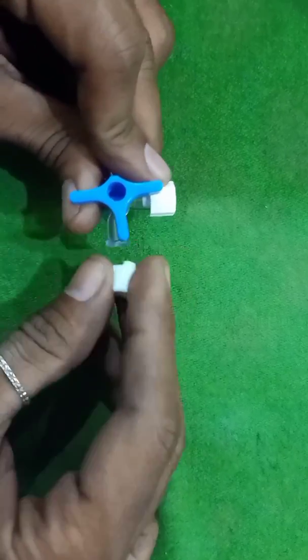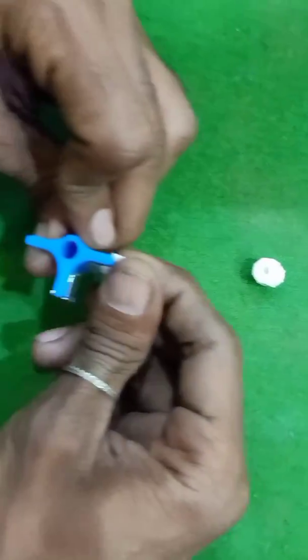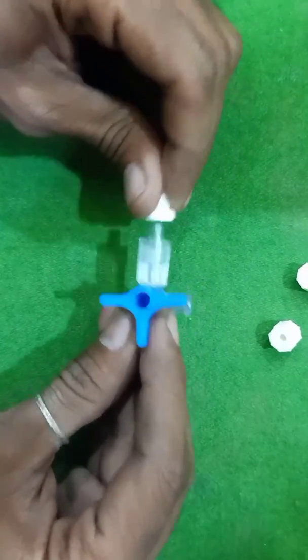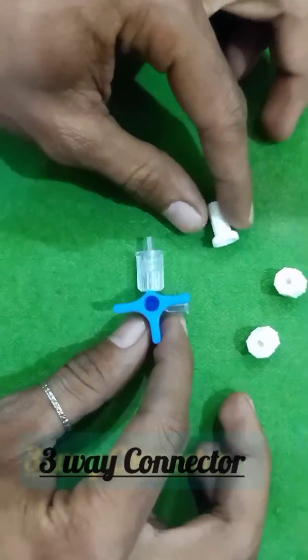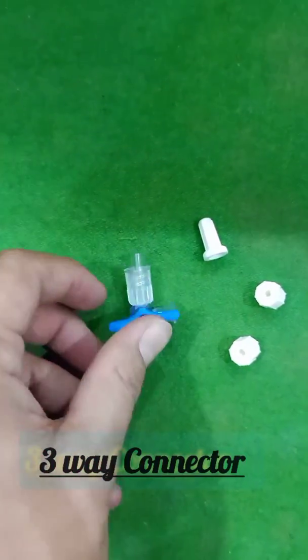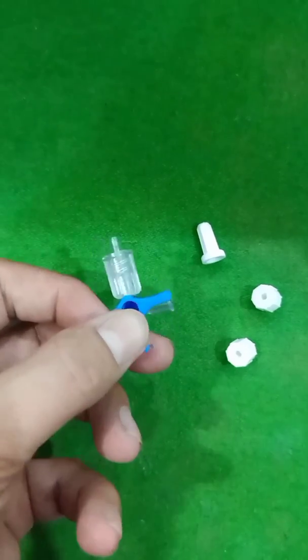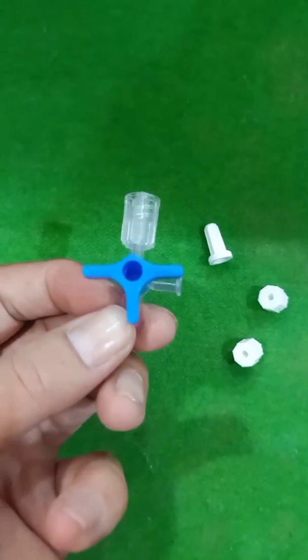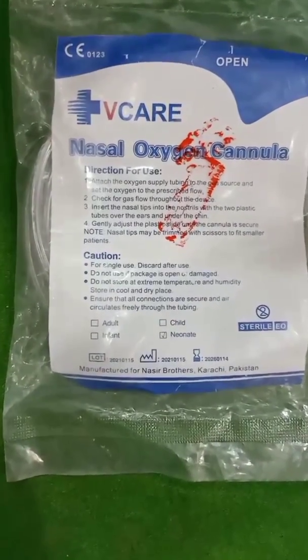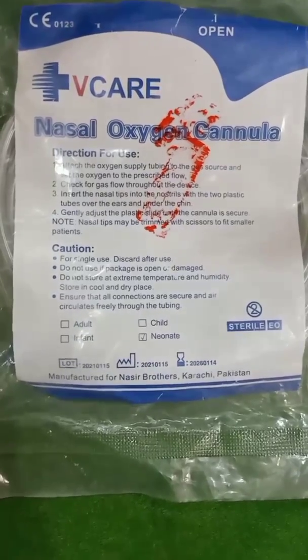Now you are seeing the three-way connector on the screen in close view. It is a three-way connector used with a cannula when you want to administer more than one drug to the patient.